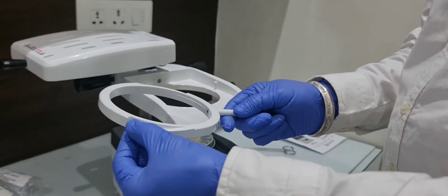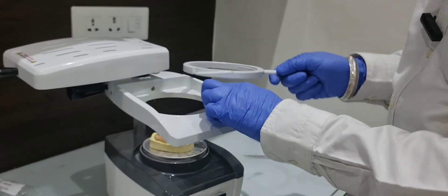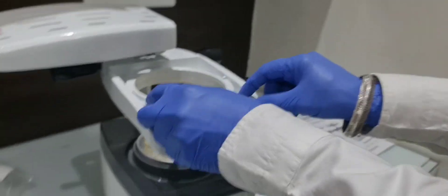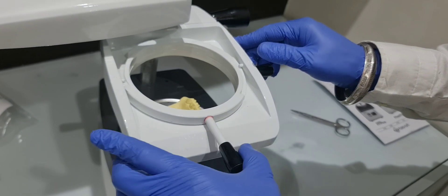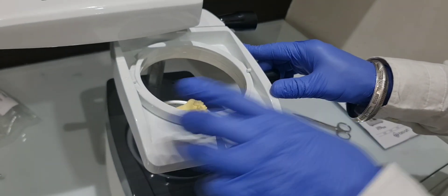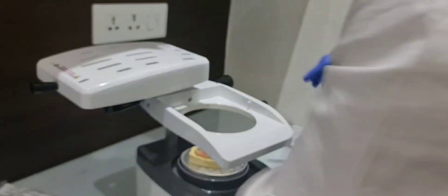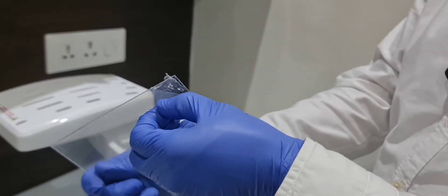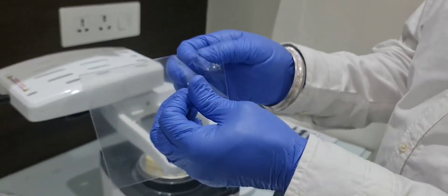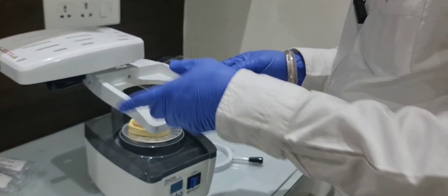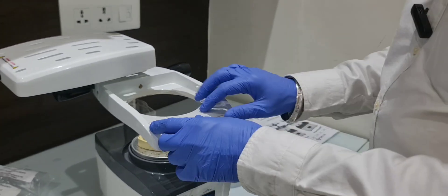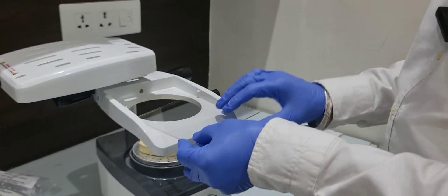You can see the cuts are here in this, and this is to lock the sheet so you can use this. I will use this hard 1.5mm tray. Just keep the tray inside.